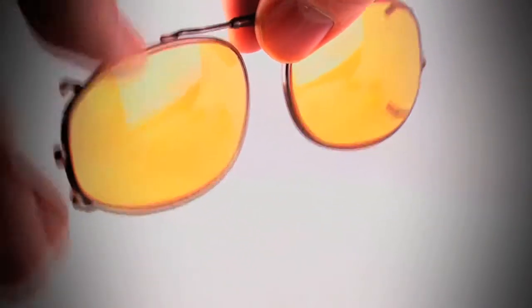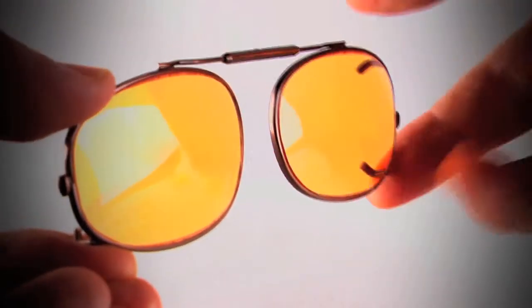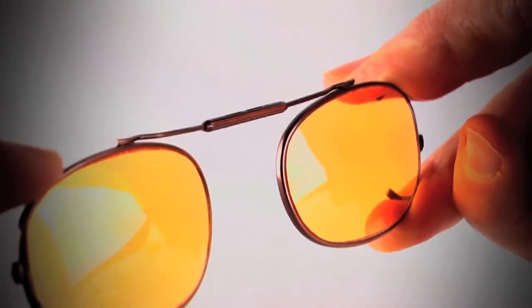The clip-on frame is made of durable stainless steel with plastic coated clips to keep your lenses scratch free. The patented spring-loaded bridge makes attaching your clip-on simple.